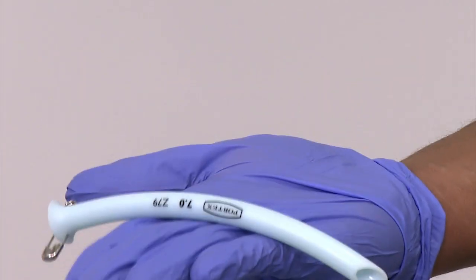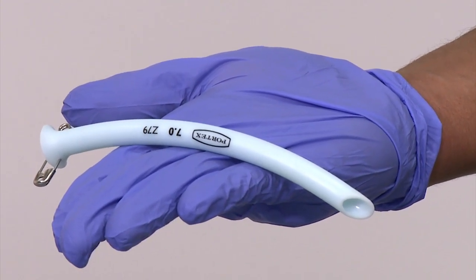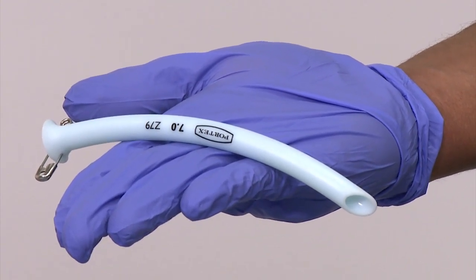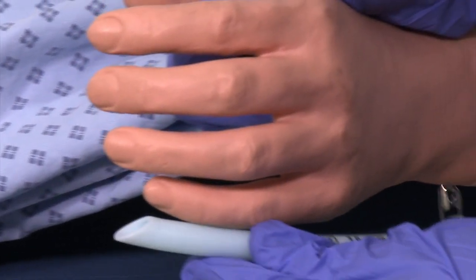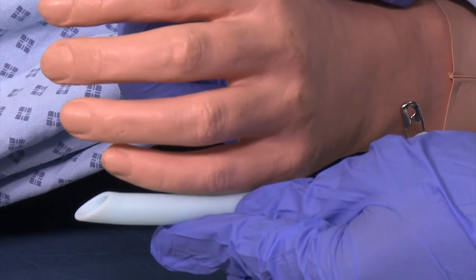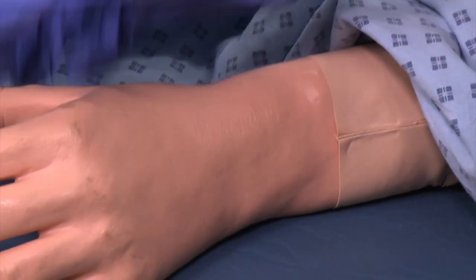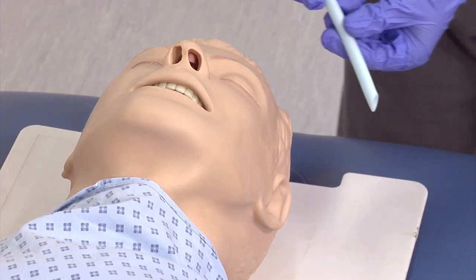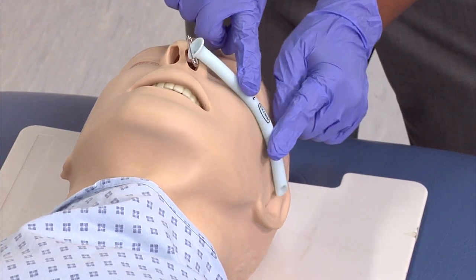The nasopharyngeal airway has a bevelled tip and flange end. Sizing is important: correct sizing can be ascertained by matching the diameter of the nasopharyngeal airway to the diameter of the patient's little finger. As a rough estimate, the airway size selected should also correspond to the distance between the patient's nostril and the meatus of the ear.